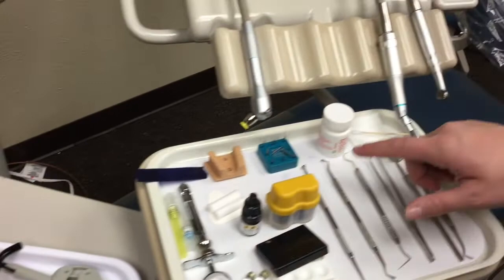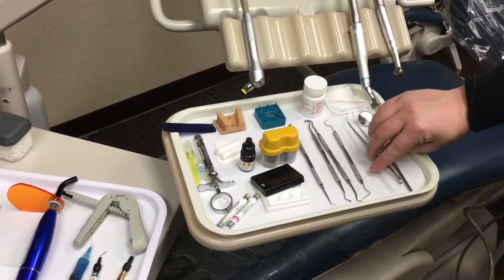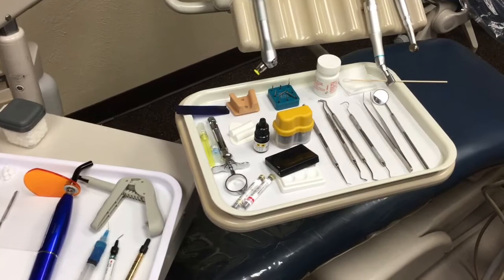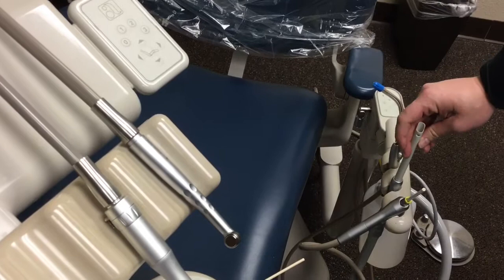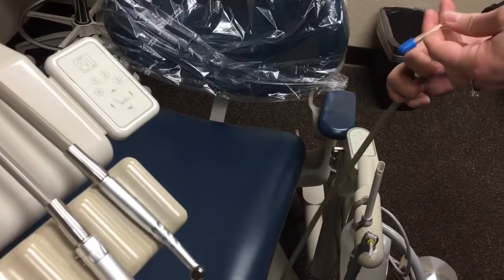So going forward, what we have here is our main dental tray. We have our basic setup which is going to be our mirror, our cotton forceps, our perioprobe, and our explorer. On the dental assisting side, for the basic setup, we have our air water syringe, our HVE for high volume evacuation, and then we also have our low volume evacuator or saliva ejector.